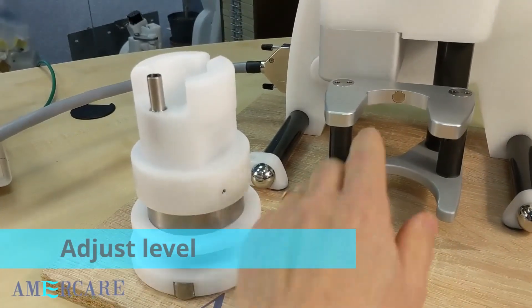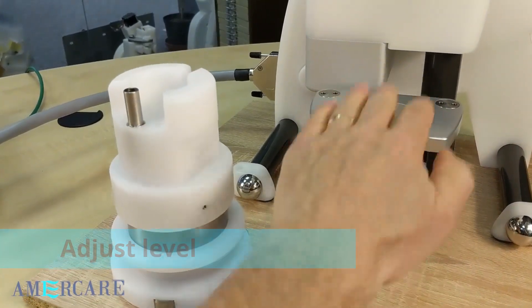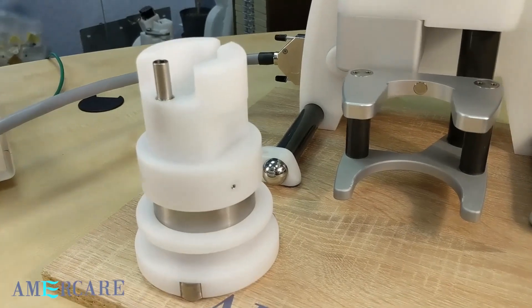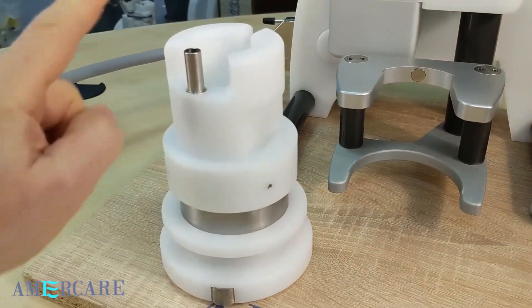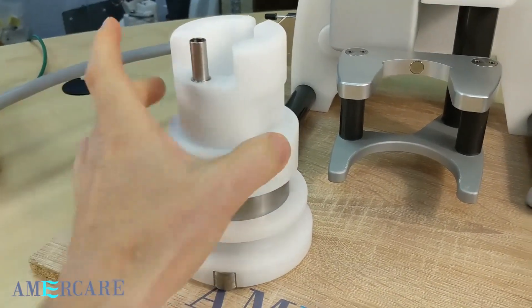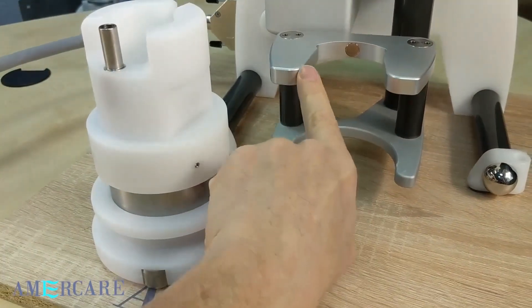Once the machine is datumed, the carriage here should be in the correct position to accept the vial shield. The orientation of the vial shield has the sheath holder away from the unit. It has a tapered section that aligns with the tapered jaws of the carriage.